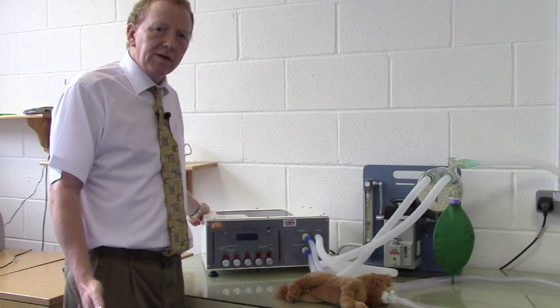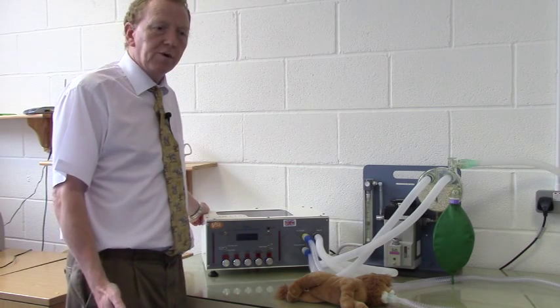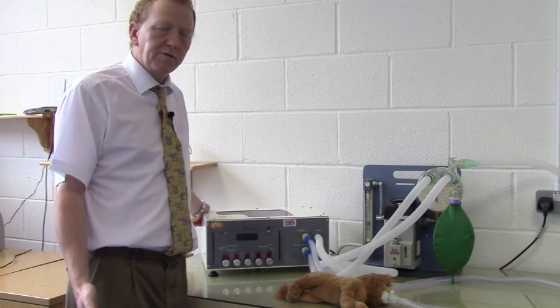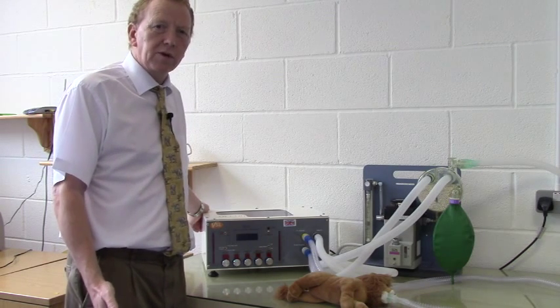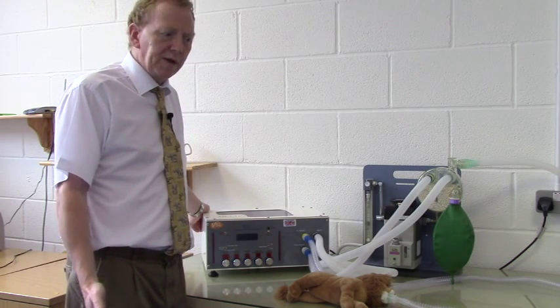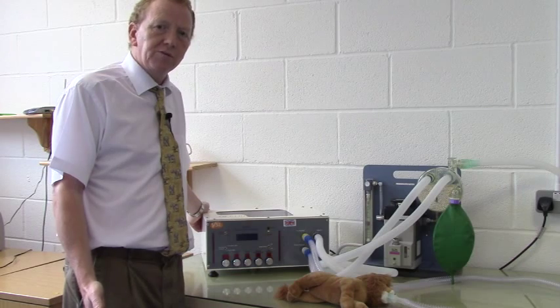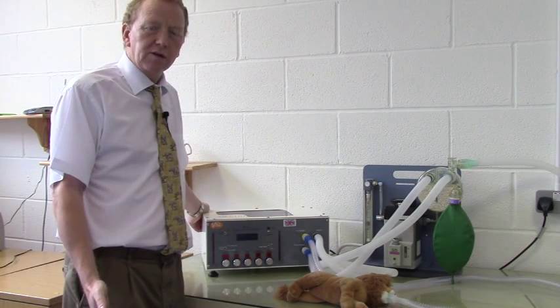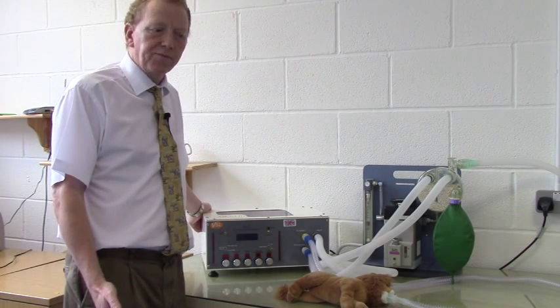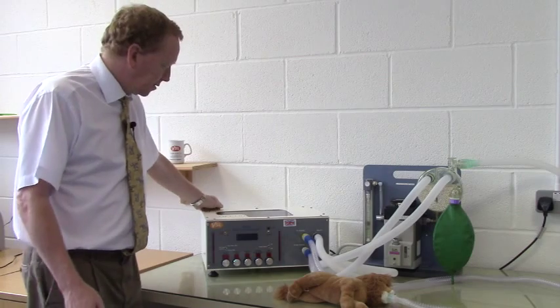The calculation of the tidal volume is really straightforward. It is covered in lots of notes available on the website. Basically, we're going to assume 10 mils per kilo body weight as our tidal volume. So first of all, we'll turn Merlin on.